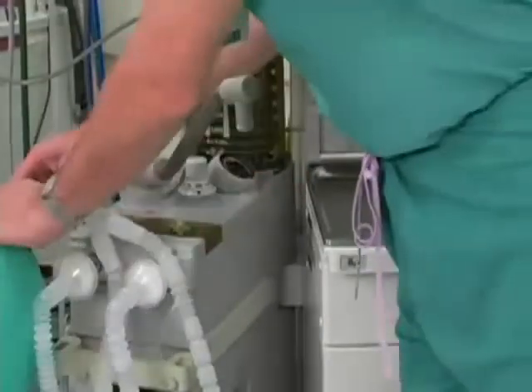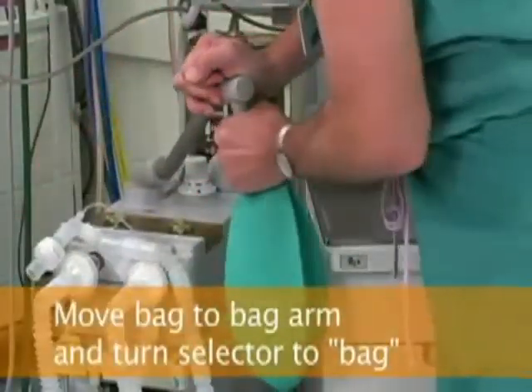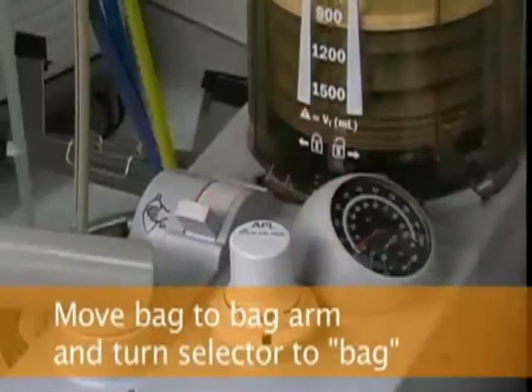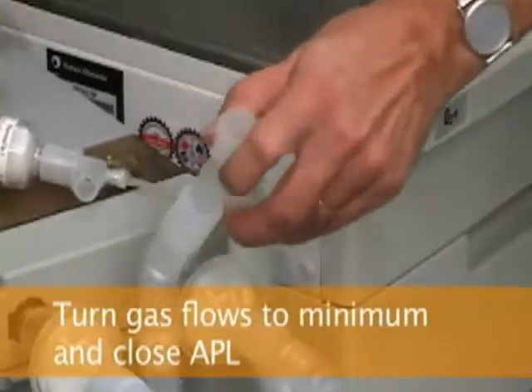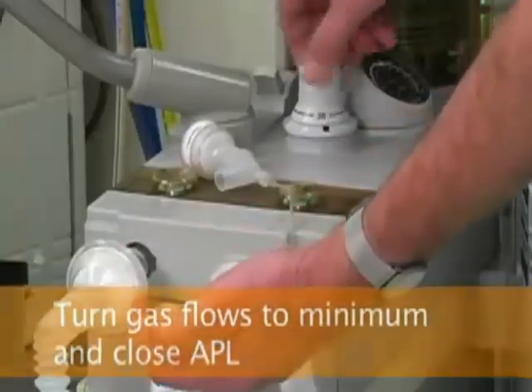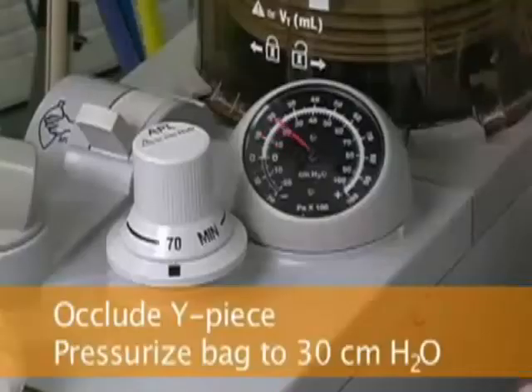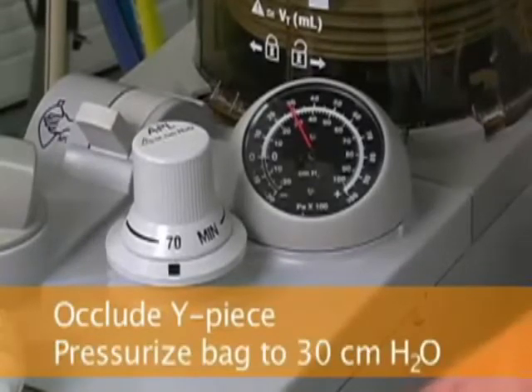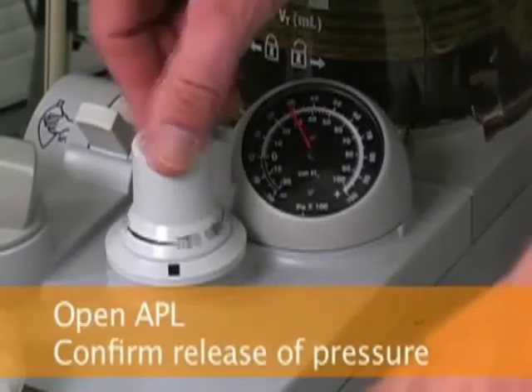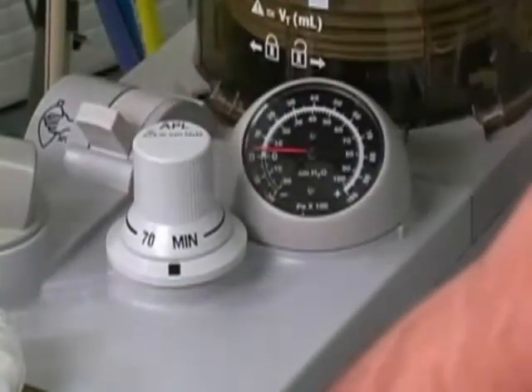Move the reservoir bag from the Y piece to the bag arm and turn the ventilator selector switch to the bag position. Turn gas flow to minimum, close the APL valve, and occlude the Y piece with a finger. Then pressurize the bag to 30 centimeters of water by pushing on the oxygen flush valve. Verify that the pressure remains at 30 centimeters of water for at least 10 seconds. Then open the APL valve and ensure that the breathing circuit pressure decreases.